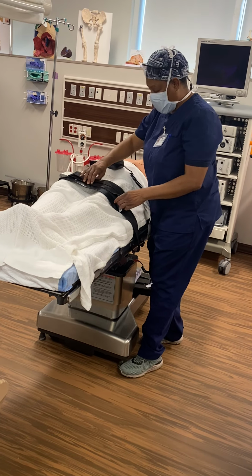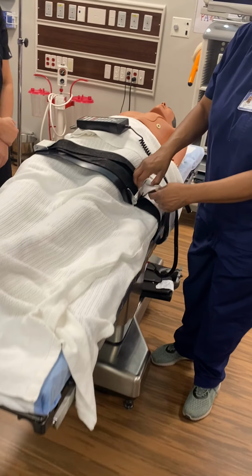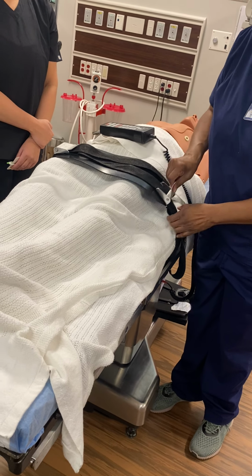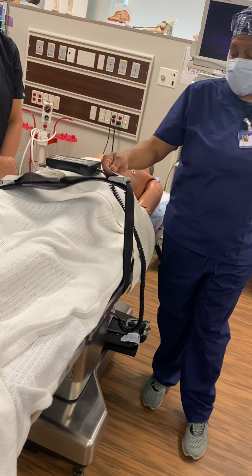Each one of you will do something different. Tilt, so left, this tilt is a right. Safety strap, okay? Remember that goes on every patient. Let's say we're now on the operating bed, okay? The surgeon wanted the head over there. There's gonna be different safety straps. You're gonna have some like this, and you have some like this.